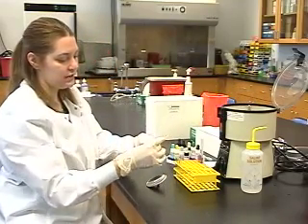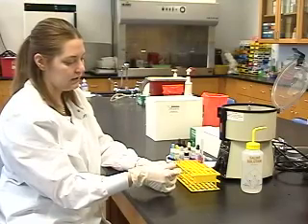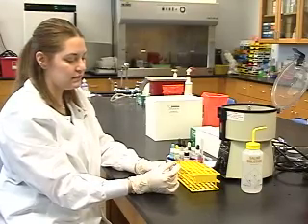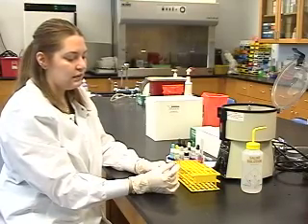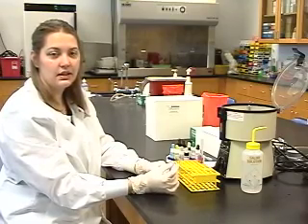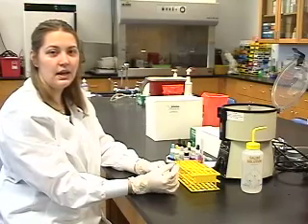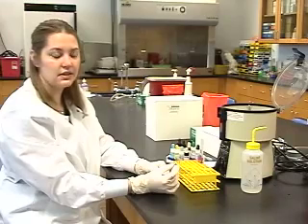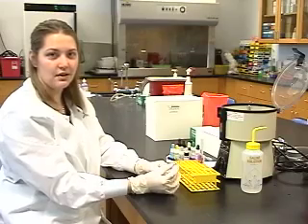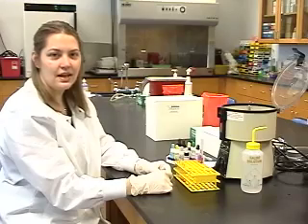Now we will read the reverse reactions. Check again. We have no agglutination in either the A1 or the B cells. This indicates that there are no anti-A or anti-B antibodies present in the patient's plasma. We would expect this reaction because the patient does have A and B antigens on the surface of their red blood cells. Remember that we never make antibodies against antigens that we have present on our red blood cells. At this point, we can interpret our patient as AB positive.